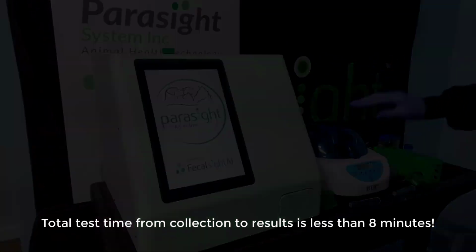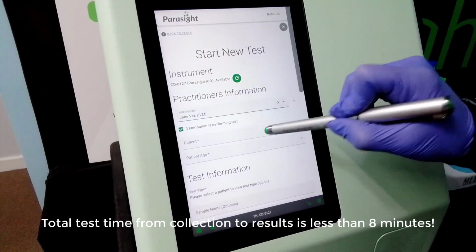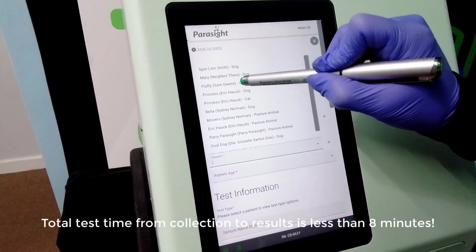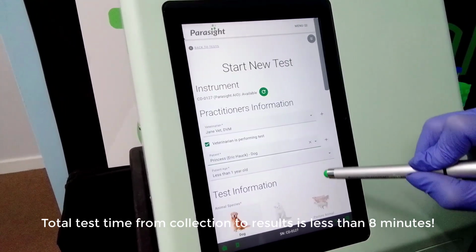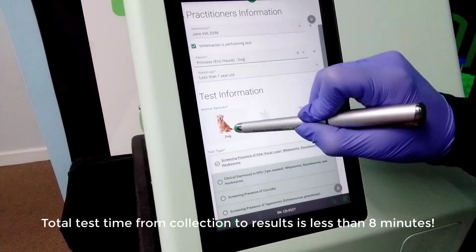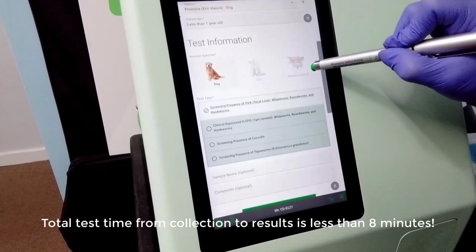While the centrifuge is operating, go to the Start New Test screen. Select a patient from the available list or enter new patient data if needed. Select species and then select the test to be performed. When ready, select Start Test.